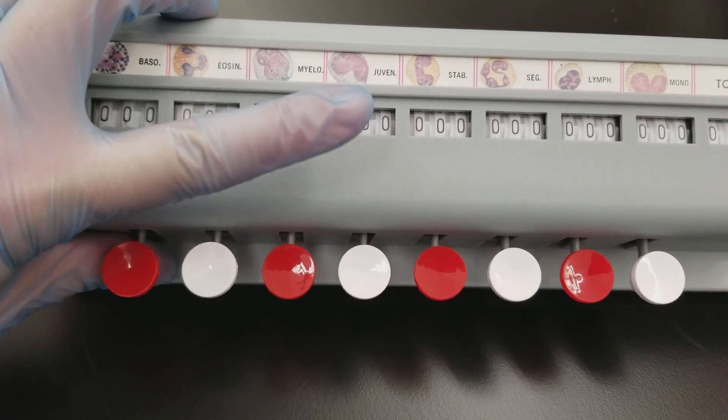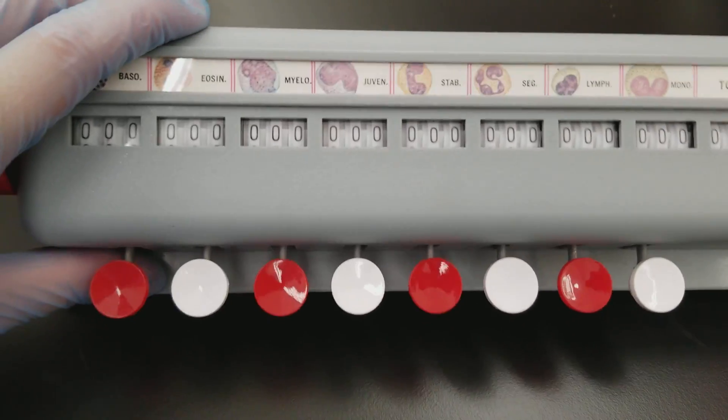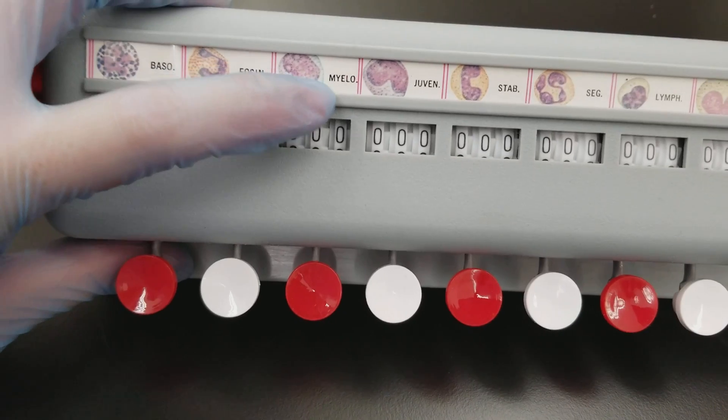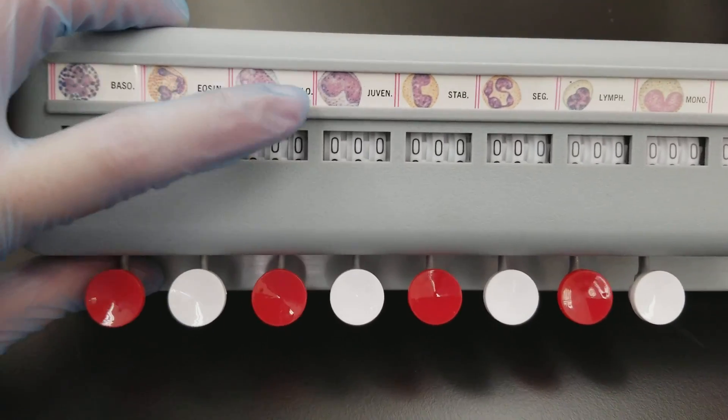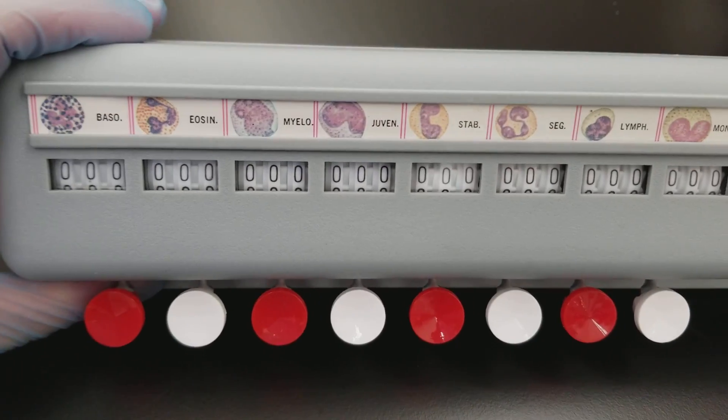So if some of these don't actually fit with what you see, maybe you don't have myeloblasts. Maybe instead you have more lymphoblasts. You could put that there or here. It really doesn't matter. It's up to you.